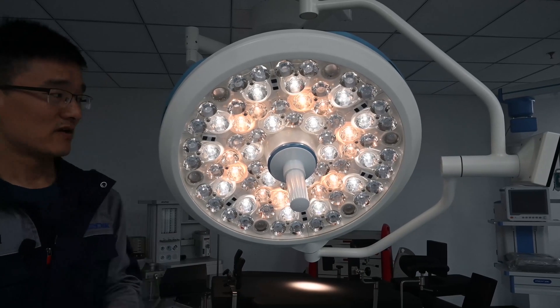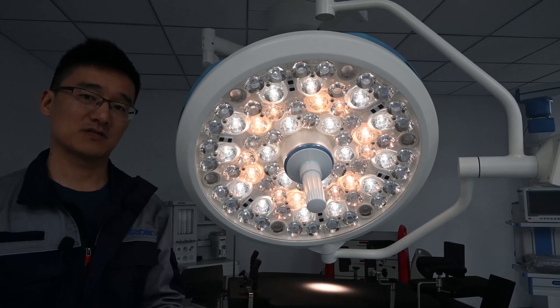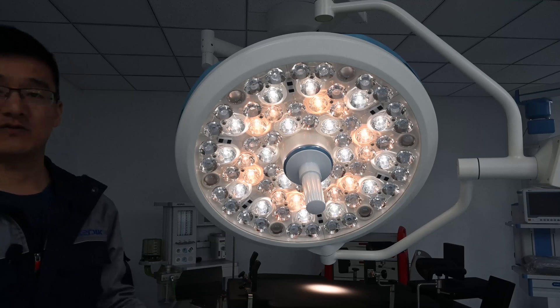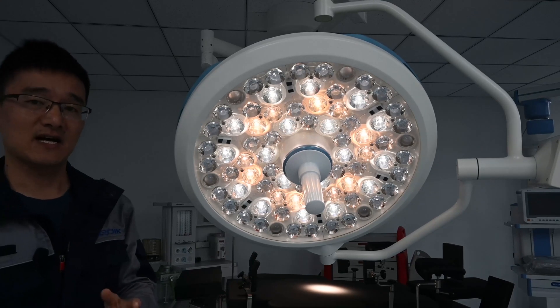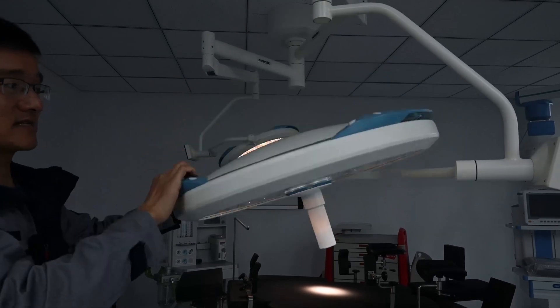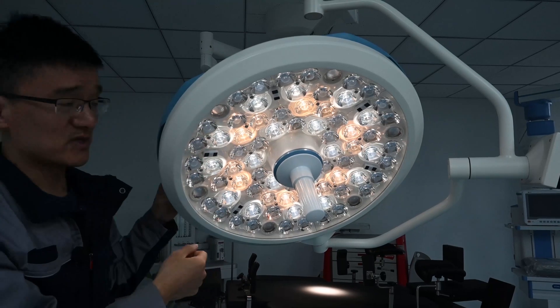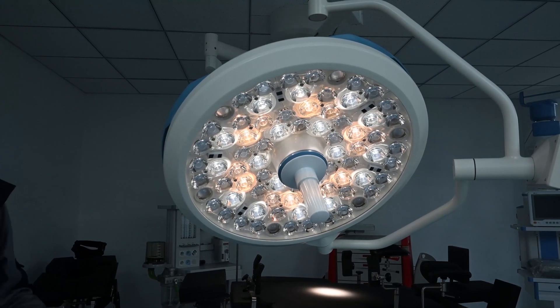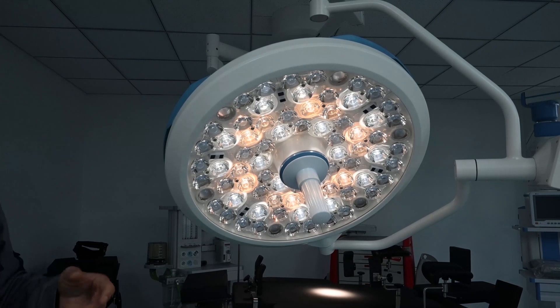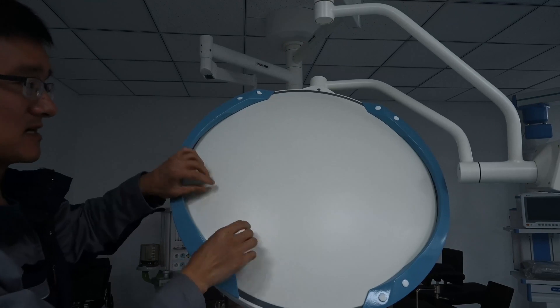The third important index for the lamp is temperature rise. A surgery normally lasts for a few hours or even more, so it is difficult for doctors and medical staff to stand under a lamp that generates a lot of heat. A good surgical light should not raise the temperature dramatically. We designed this lamp with new technology lenses with good light transmission, so we use minimized power to generate enough light, reducing heat output. We also use an aluminum cover to maximize heat dissipation.